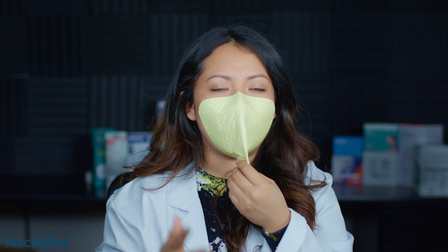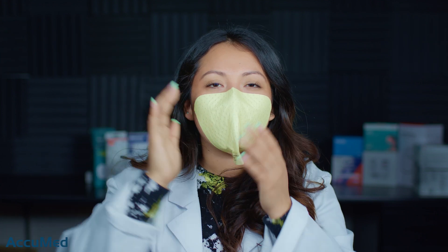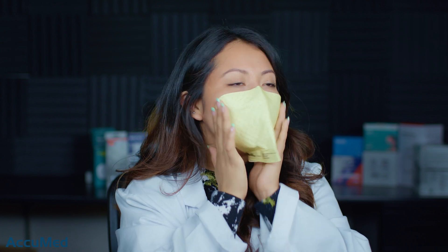I'm going to follow the instructions, make sure that it's sealed, and slowly start working my way down. Okay, so I was able to put it on — it didn't take as long as I thought, but it does take longer than applying a regular headband respirator. This is how it looks on. I do feel like I am getting a good seal, though there is quite a bit of collapse when breathing or talking.